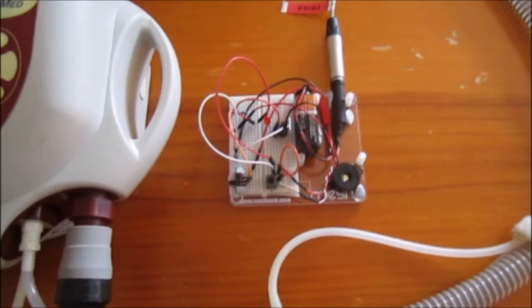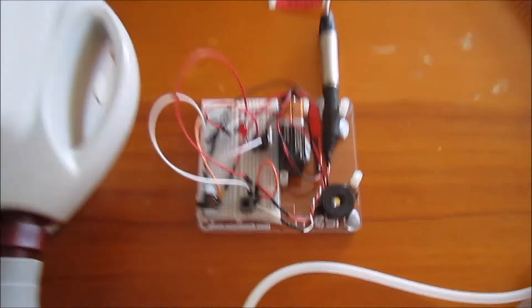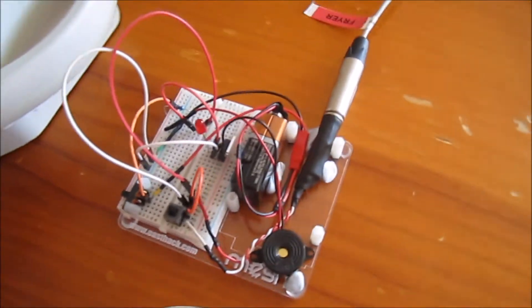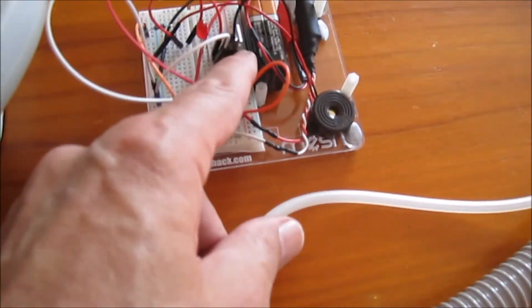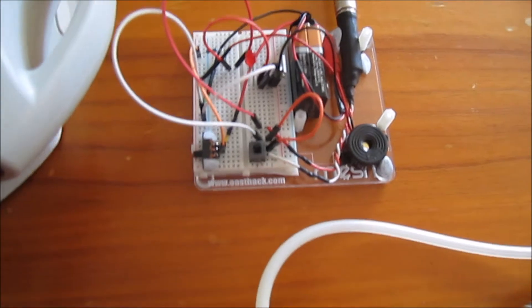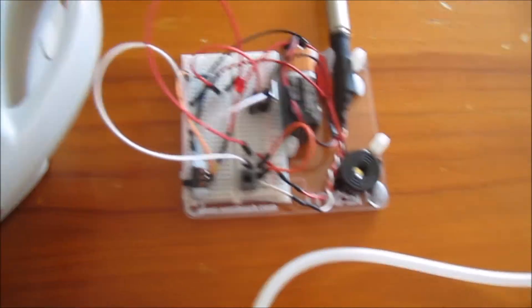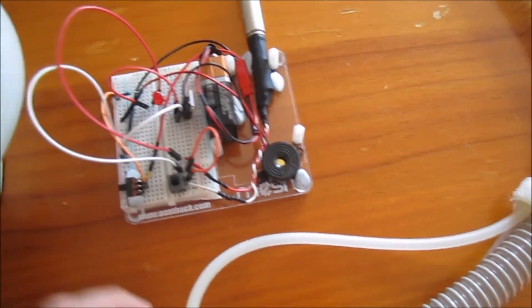I'll now describe how our new system works with the open circuit alarm. So this is our open circuit alarm system that we built. There's a little FET transistor in here that helps with the circuitry. If I turn it on, it's in alarm mode.